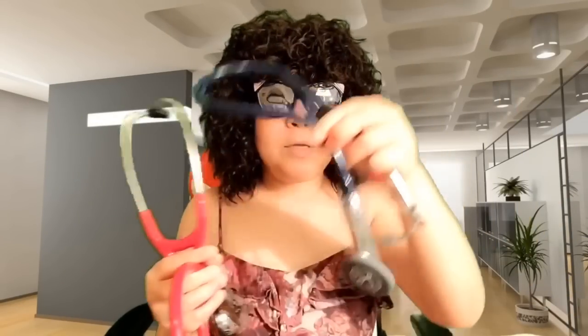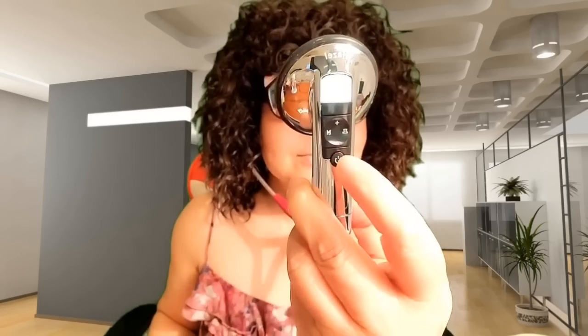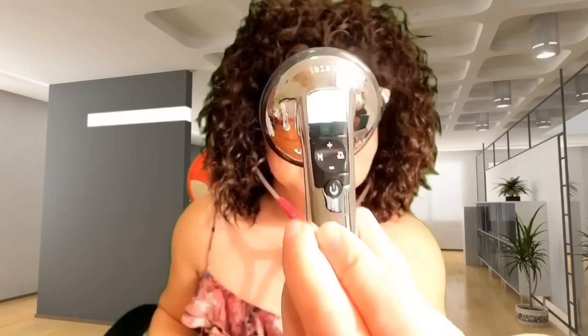All right guys, the Model 3200 brings you the very latest in advanced auscultation and wireless electronics technology in a highly ergonomic and easy-to-use format. This model's combination of ambient noise reduction technology, frictional noise-dampening materials, electronic amplification, conventional bell diaphragm, mode selection, extended range mode, Bluetooth data transfer, and an all-new user interface takes you to the next level of performance and ease of use.